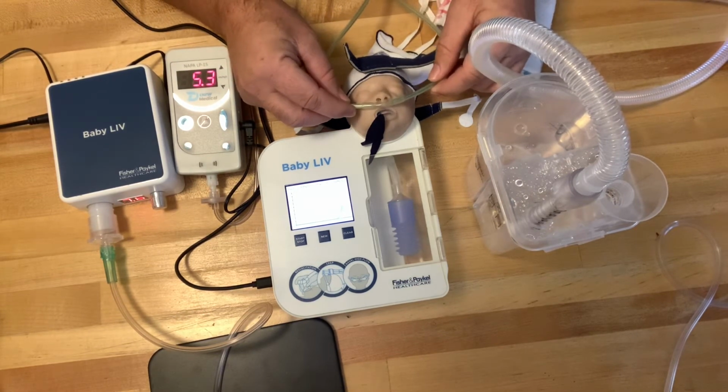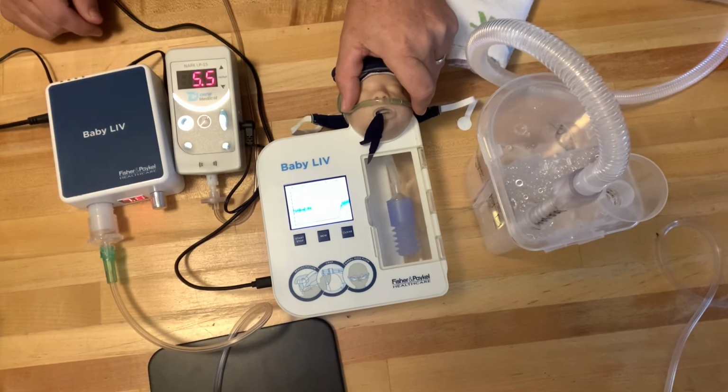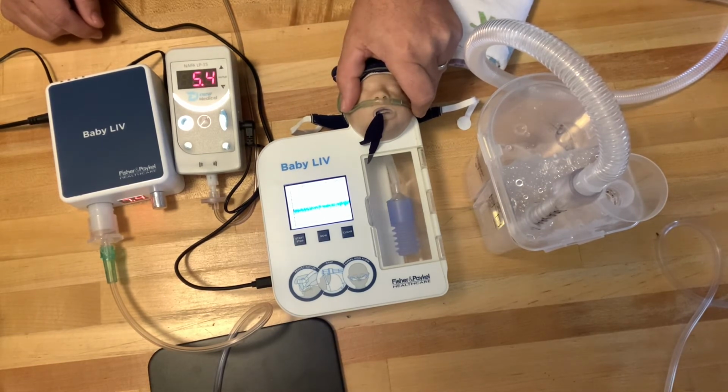So when I hook it up to the baby, I am giving the baby CPAP. Two things to notice on this. The CPAP has dropped from 5 centimeters of water pressure down to about 3.5. So I am certainly getting CPAP at 80% occlusion, but the vibrations have also been cut down from what we had, a 4 to 6 range, and now the range has changed to 3 to 4.